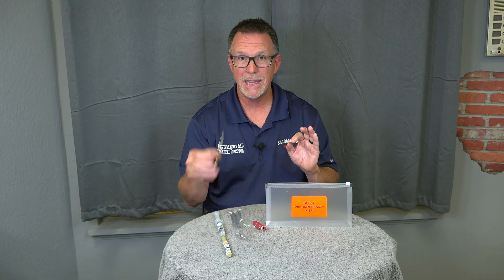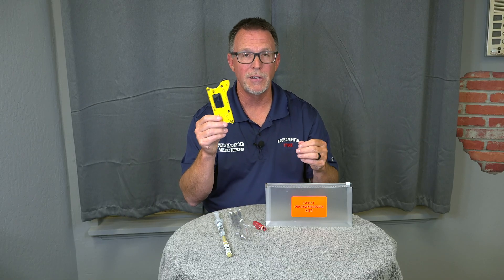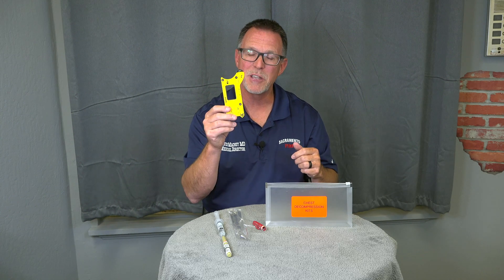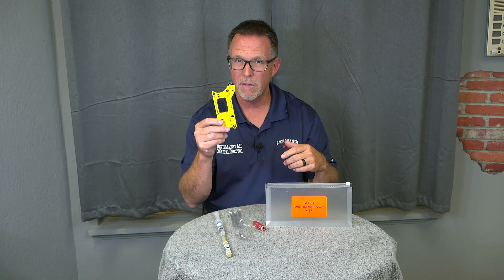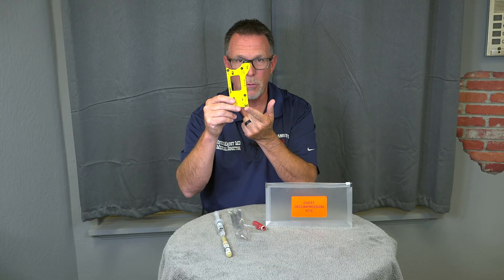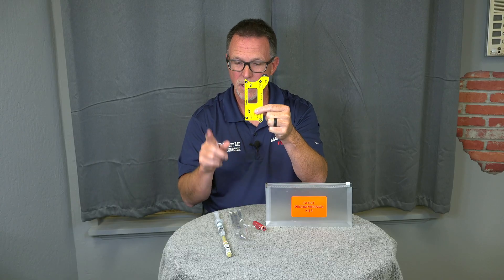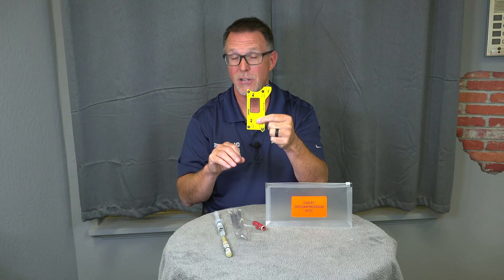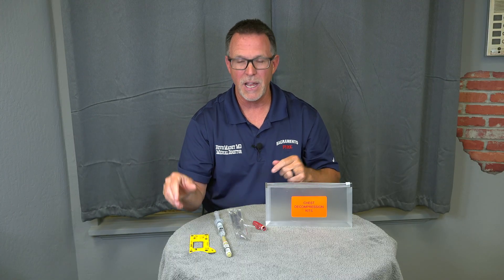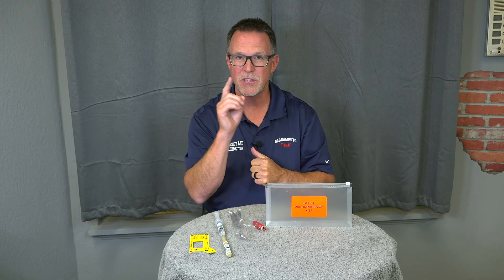Thanks for this brief video. Please take time — take this out when you're in the station and practice with it. Don't put a needle into your partner — that's not what I'm talking about. Use the card: get it out, mess with it a little bit, see how it fits in the axilla, make sure you're pointing to the hip, feel through here for the intercostal space, and then you've found the spot. Stop at step four before you insert a needle into your partner. Thanks so much. As always, reach out to the EMS Division. Thank you for everything you do, and we'll see you on the next one.